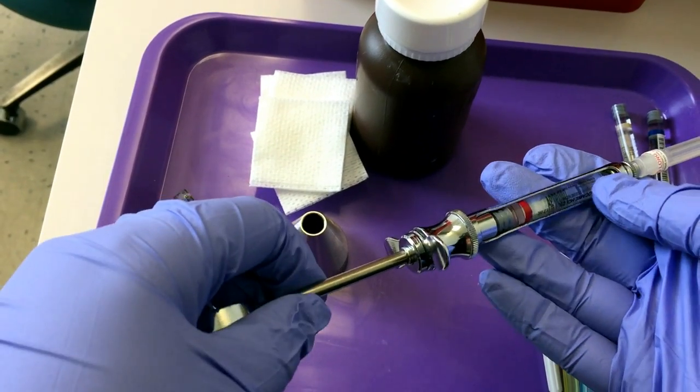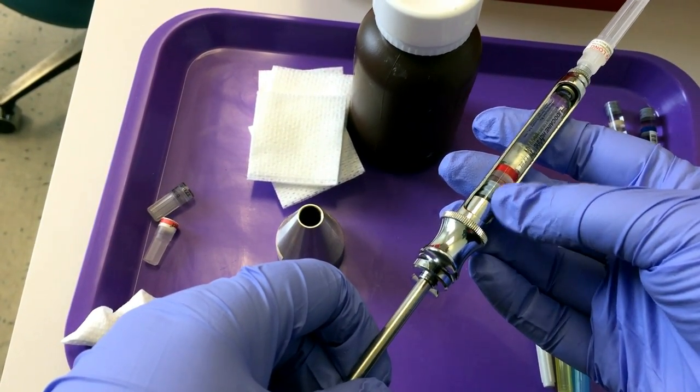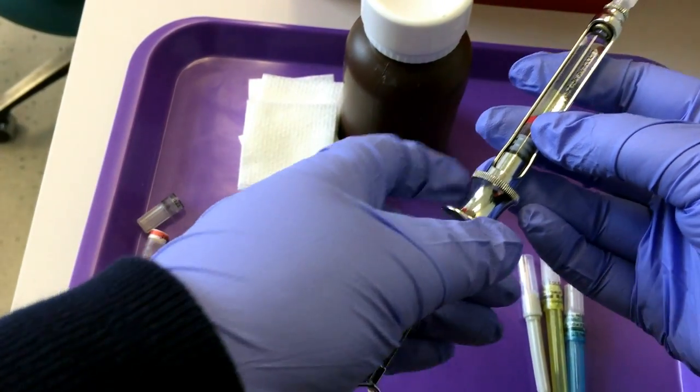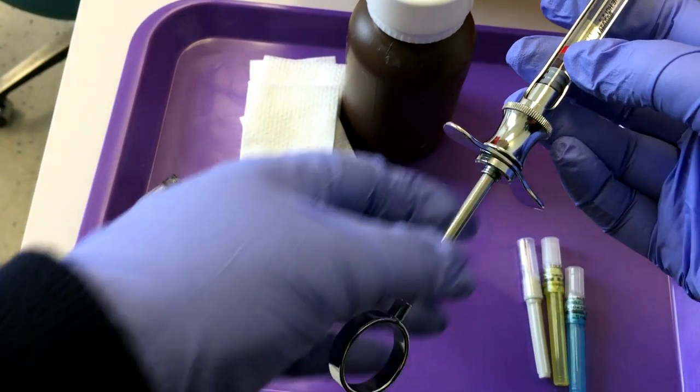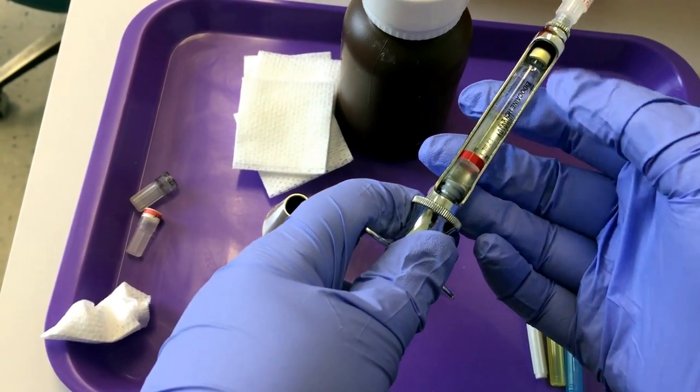To disassemble this safely, I'll first show you how to refill it. Sometimes a doctor would need to give more than one carpule anesthetic. What we have to do is disengage the harpoon, so you pull back. You'll hear it click when it's disengaged.